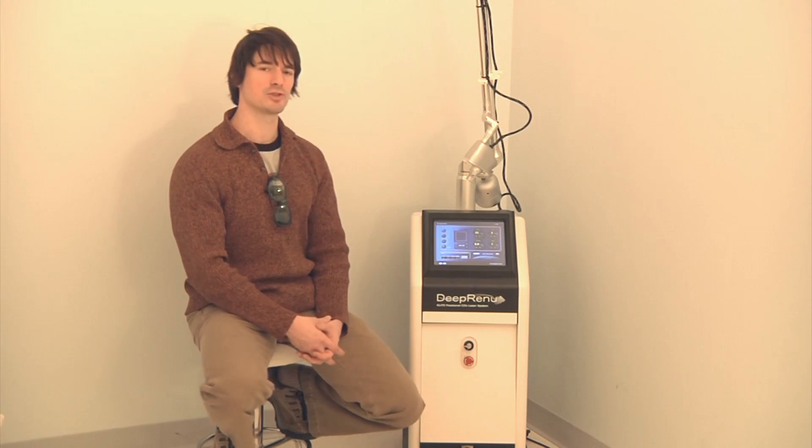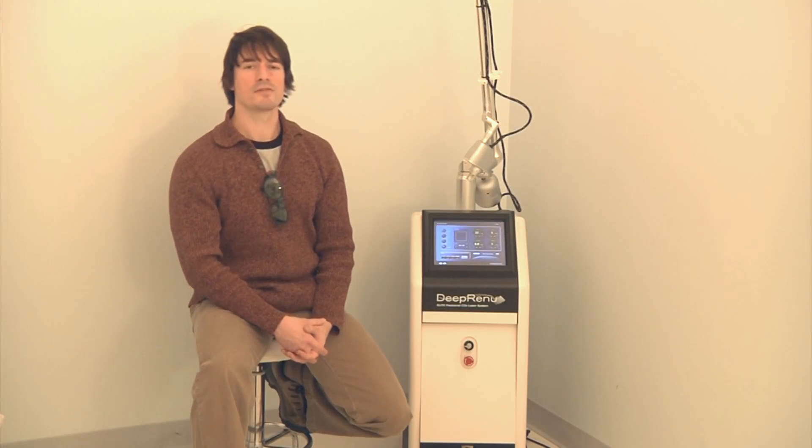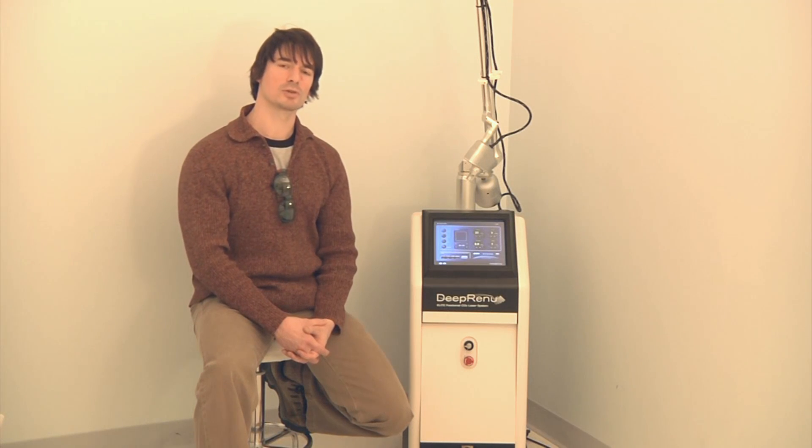The technical specifications of this laser are worth noting. One of the benefits of the engineering of this device is the way in which the CO2 laser light is generated.